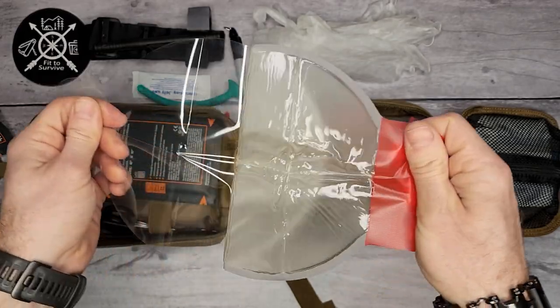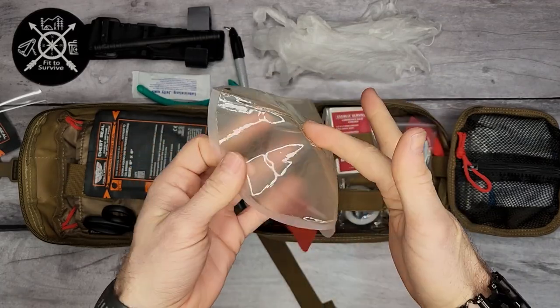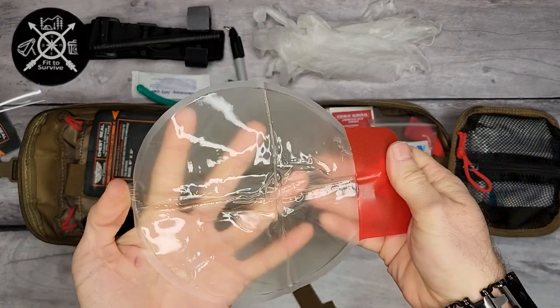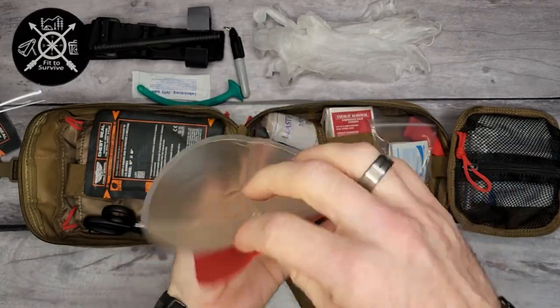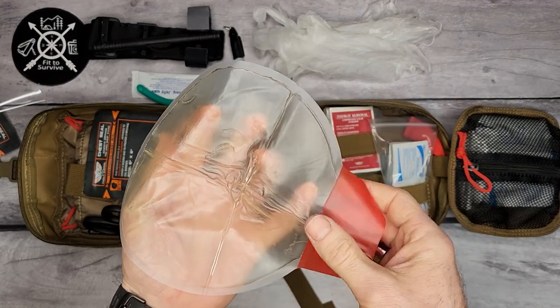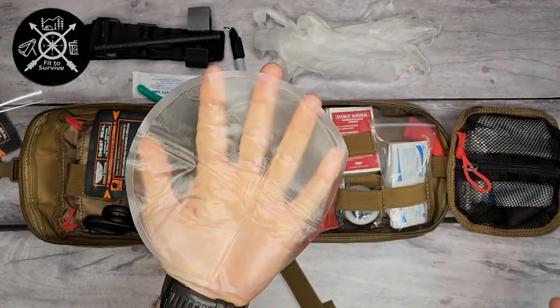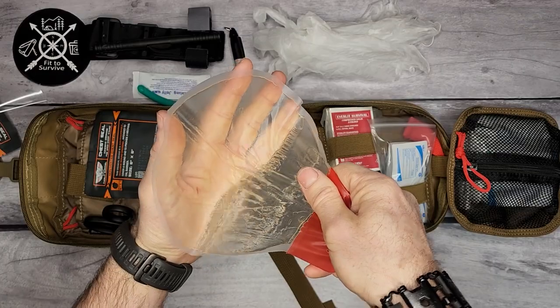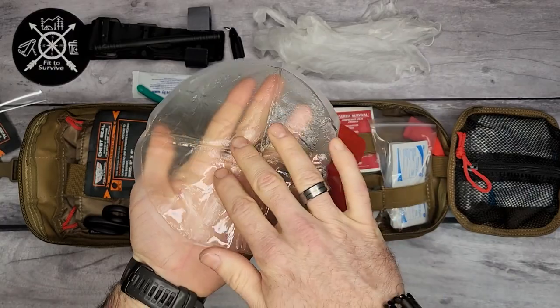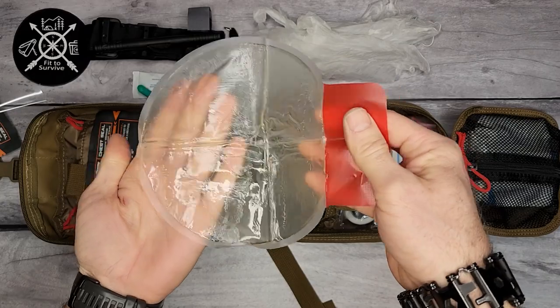You peel off the big red label and you can see it's a large, very sticky circle. It's nice and transparent so you can see exactly where you're aiming to place it on the chest wound. The reason it's so sticky is because you're going to have blood, chest hair, and sweat — you want this to be as sticky as possible.